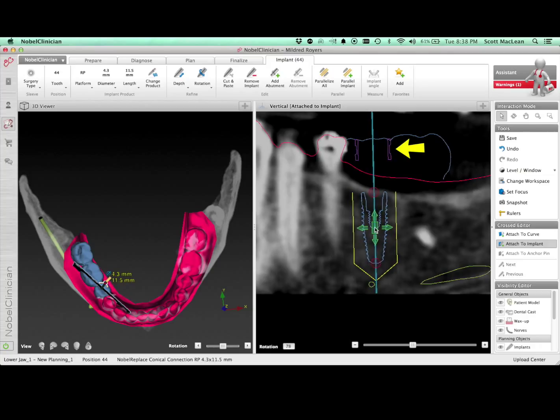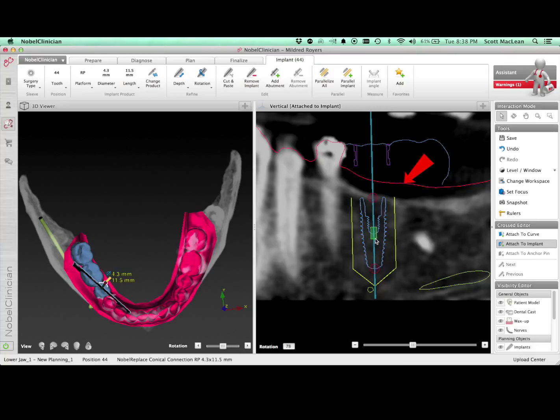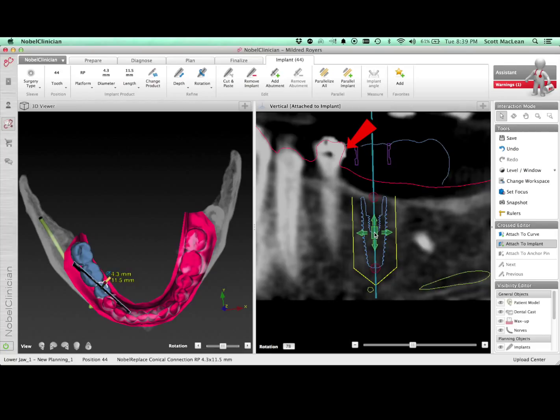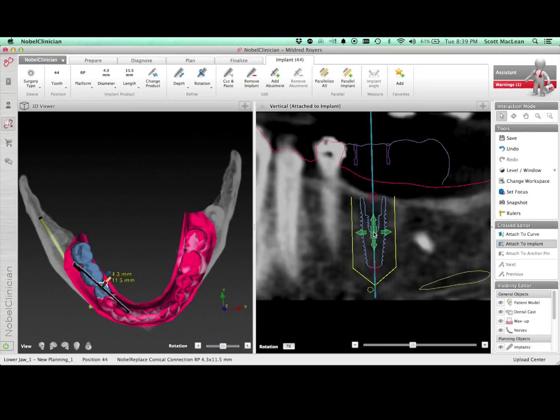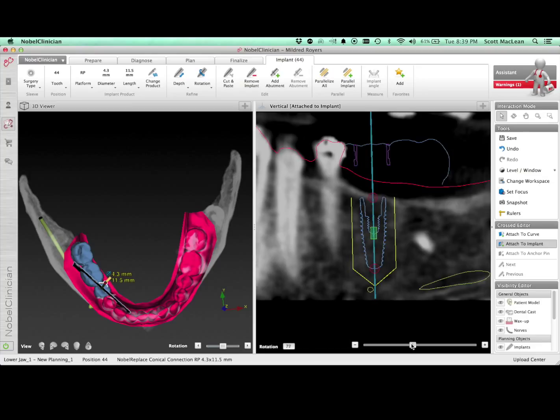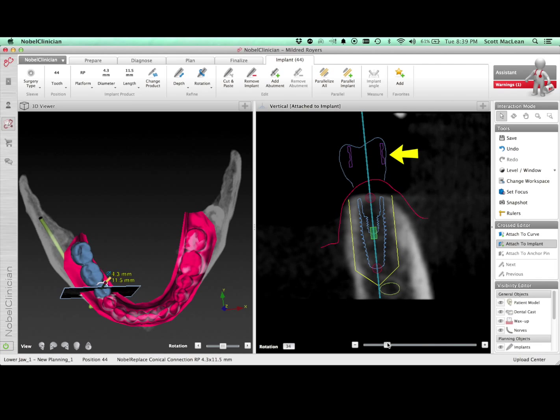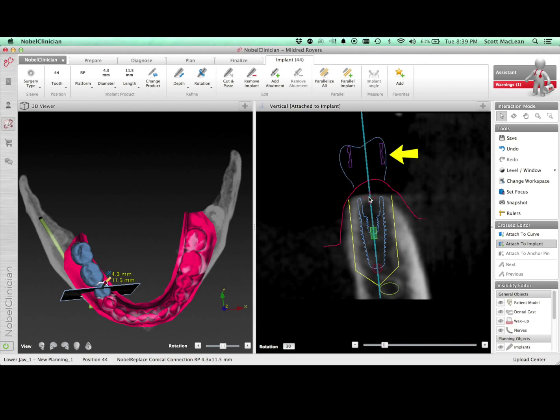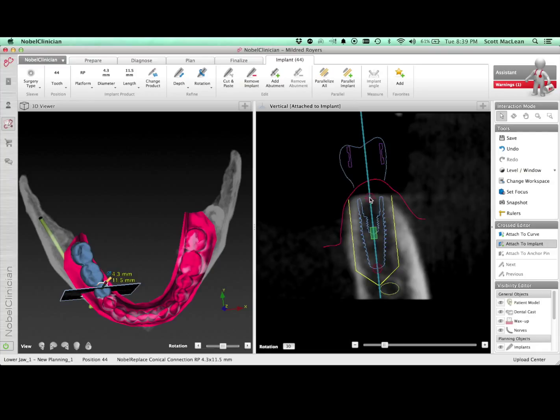The color change is happening because we're getting close to the red line. The red line represents the soft tissue but also the teeth. We don't want to be too close to the adjacent tooth, but we can go close to the tissue because we're going to cut it and move it out of the way. The part changing from orange to purple is the sleeve that's going to be in the guide. This cannot be too close to the teeth because it just wouldn't fit on the model, which means it wouldn't fit into the mouth.